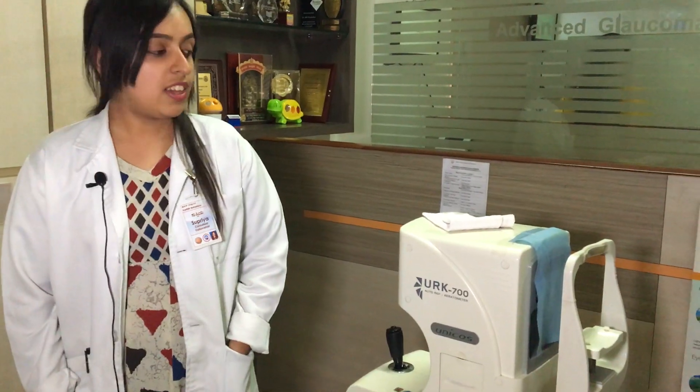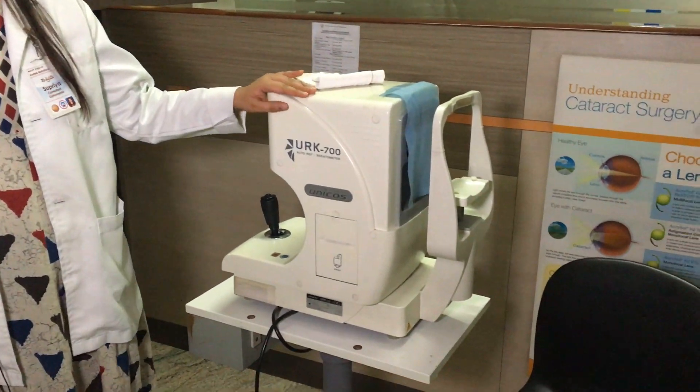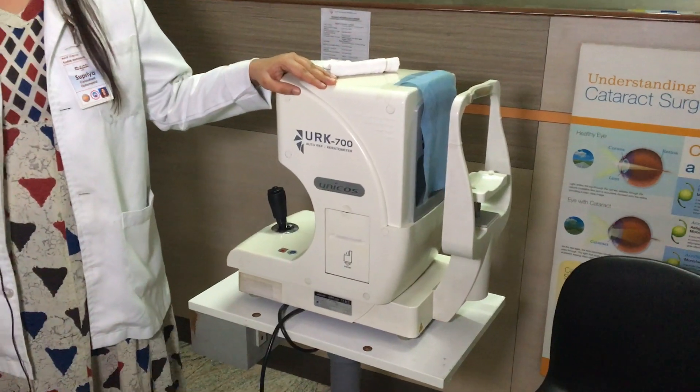Namaskara. I am a consultant optometrist at Karthik Nethra. When I talk about this machine, this machine is an auto-refractor keratometer.